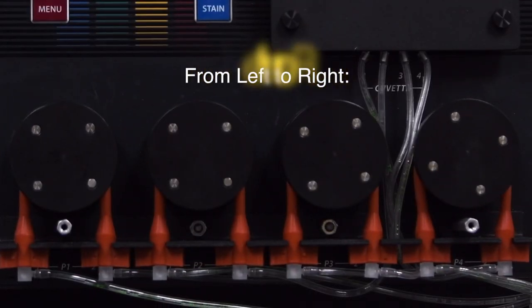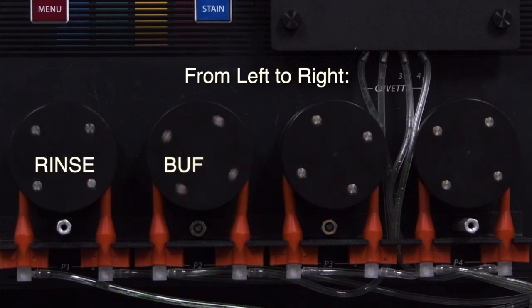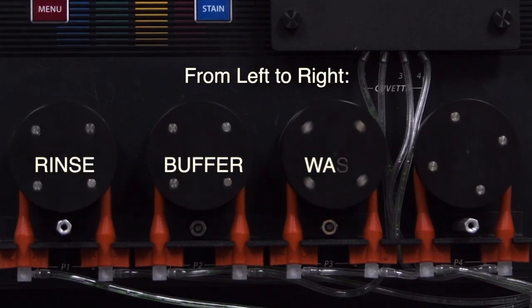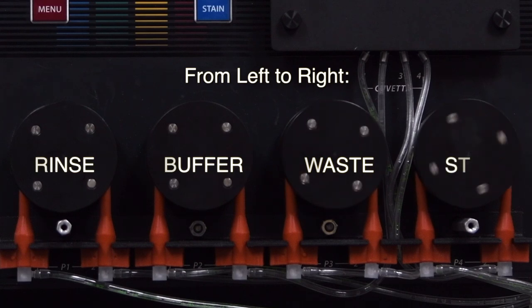From left to right: pump number one rinse, pump number two buffer, pump number three waste, and pump number four stain.